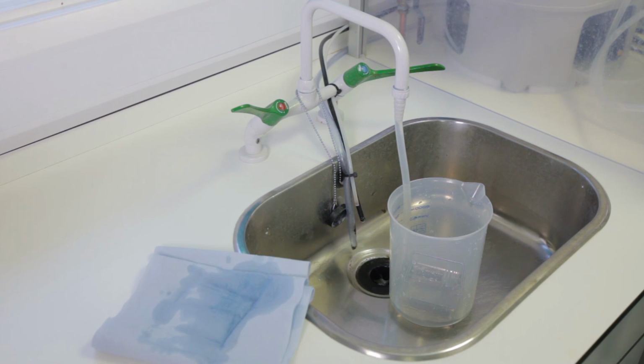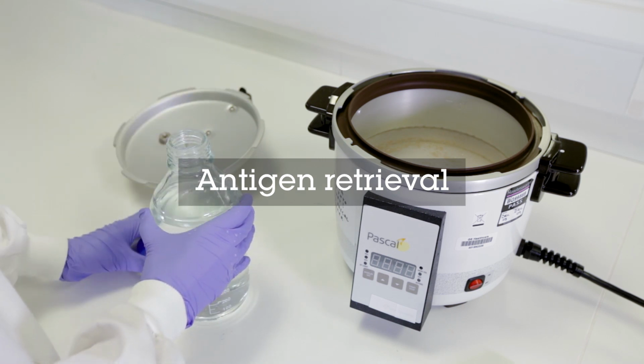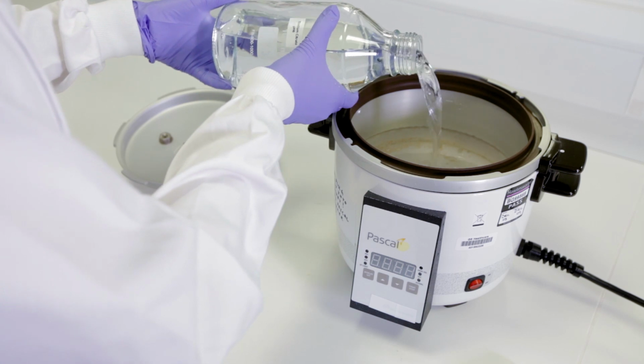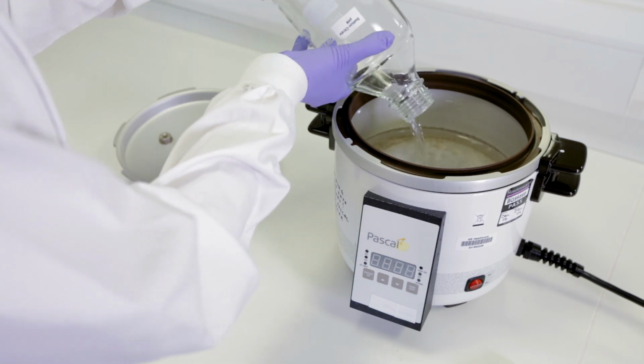The next stage is antigen retrieval, a process where methylene bridges, which form during fixation, are broken to prevent the masking of antigens. There are two methods of antigen retrieval: enzymatic and heat-mediated. The method chosen depends on the antigen, however, heat-mediated is most common.